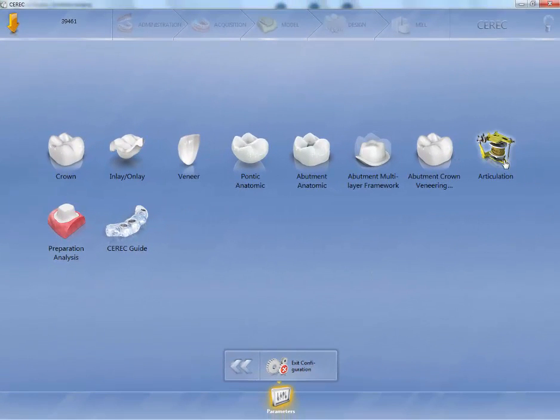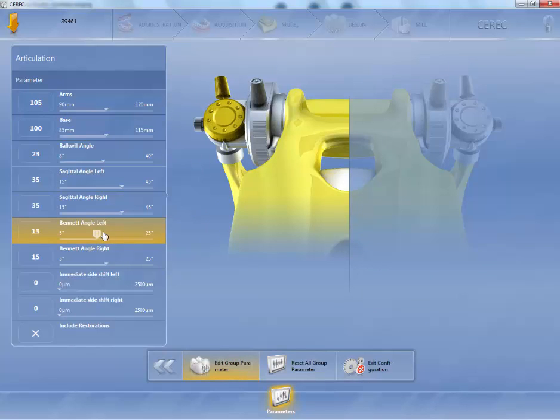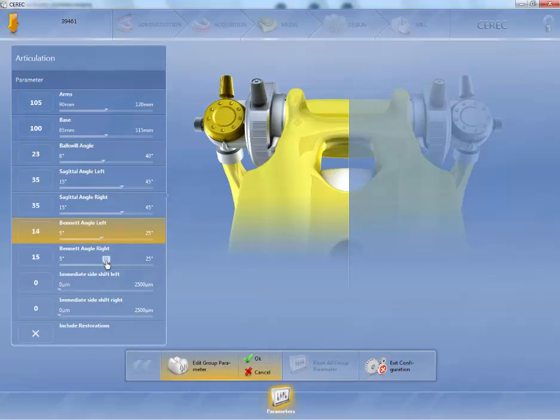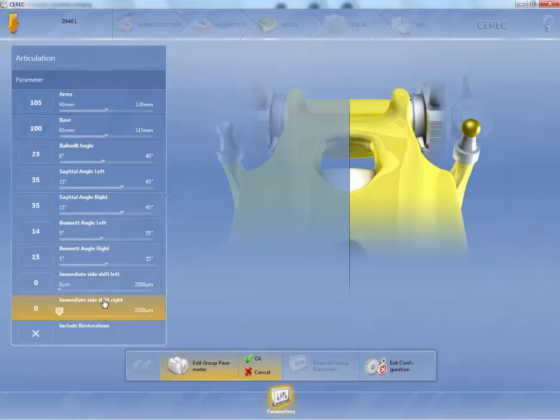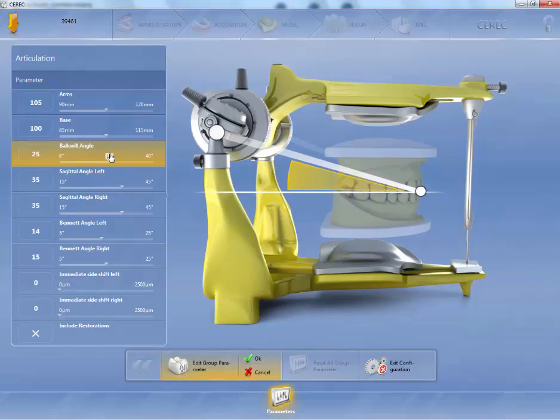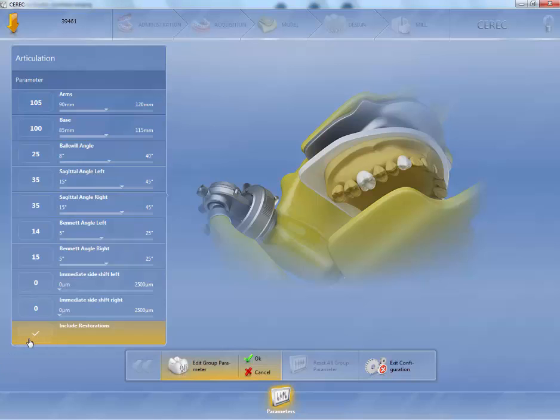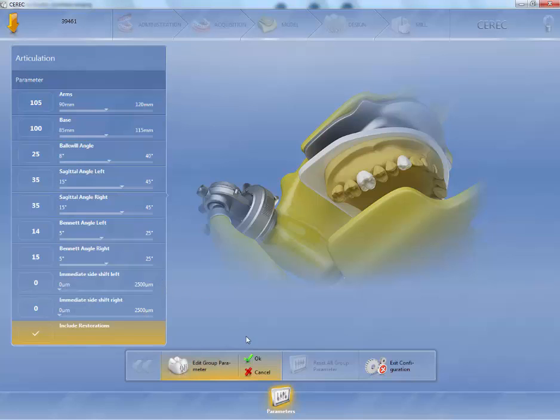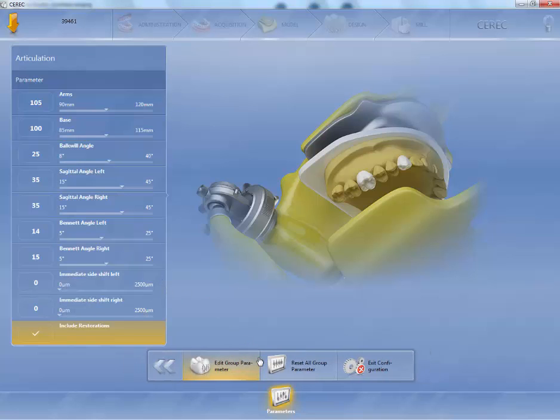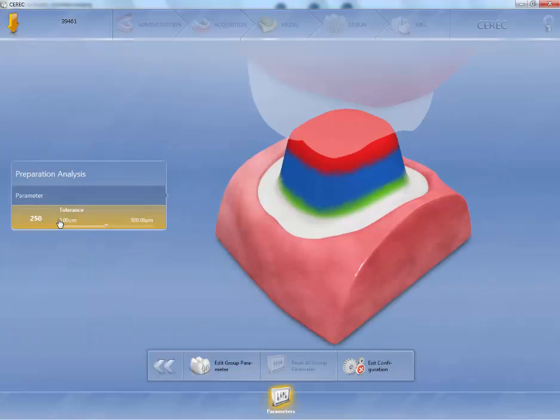Articulation. What articulation does, this is an average-based articulator. And as you can see, if you wanted to change any of these, you can change this as if it was a fully adjustable articulator. And most of the time, I just leave everything as default. Unless, for some reason, you do get a scan of a patient with a new Galileos input, you can make this an actual patient type virtual patient. So, include the restoration for the articulation on function, you can either turn that on or off. We're going to turn that on. And then, now you can see that this is not anything that we can set. This is set for everyone. So we're going to hit OK.